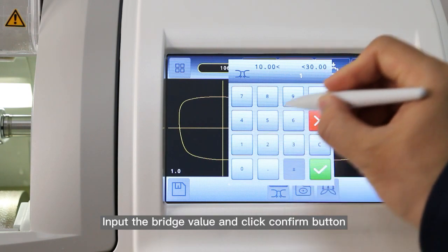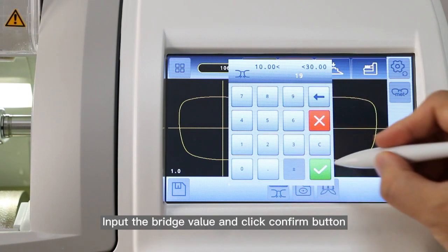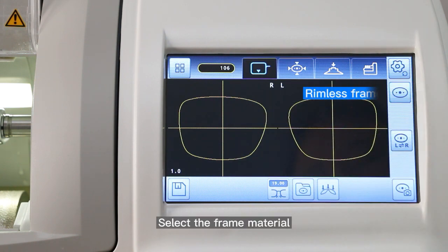Input the bridge value and click the confirm button. Then select the frame material.